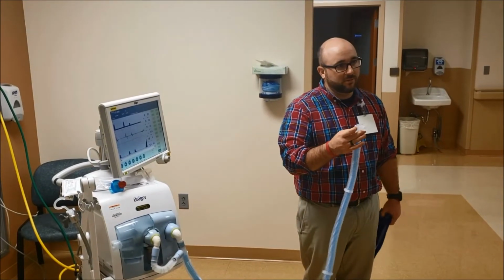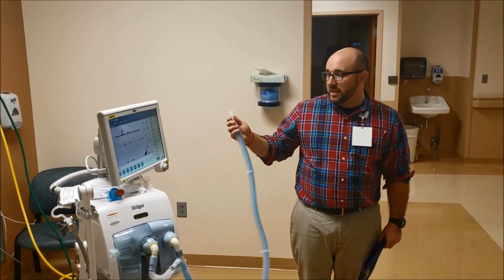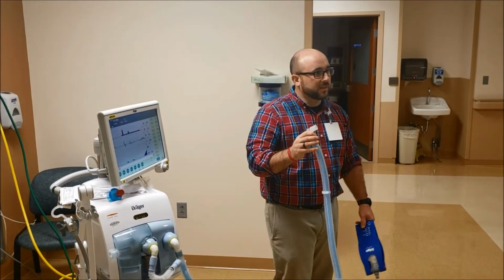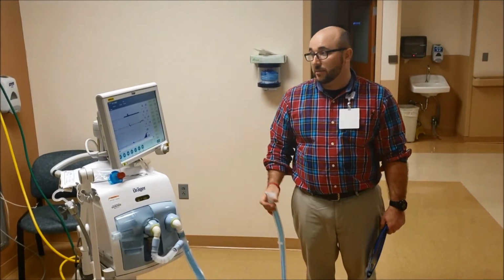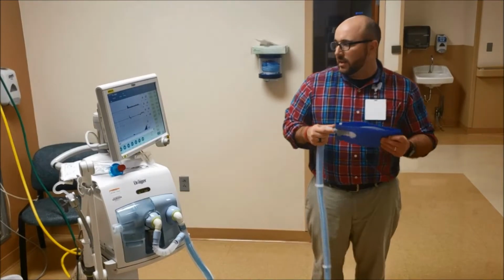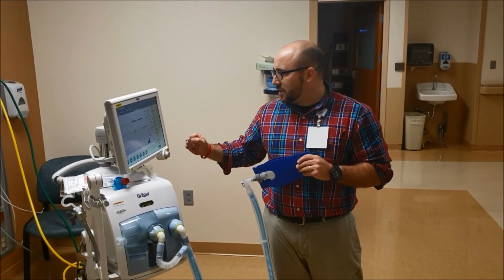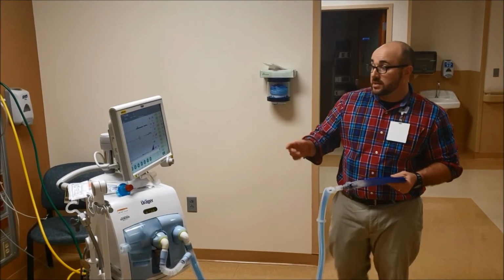As soon as you extubate, it doesn't blow. So it actually is picking that up right now and it's saying manual disconnection on. It gives you, I'm not sure how long, like 30 seconds or so, to get back around and turn the vent off and things like that. So you've told the machine you're going to manually disconnect. So that's it right there. Does it keep breathing though until you actually do it? Yes, it does. I think it gives you, let me go back and do it again. So manual disconnect. I thought it gave you a timer, but there must be a set time inside. So it's ventilating right now.